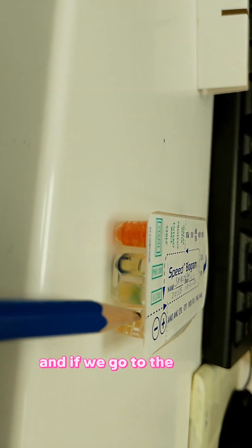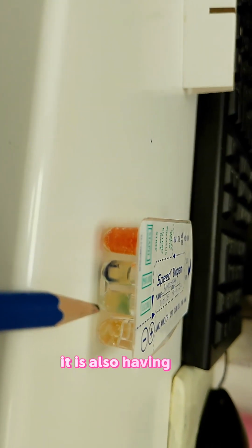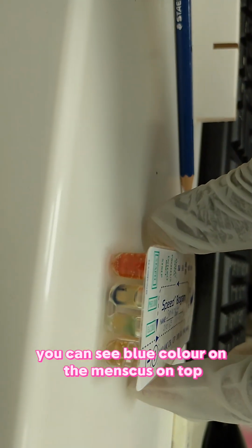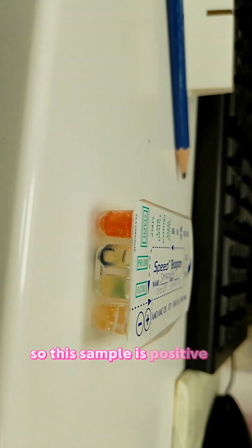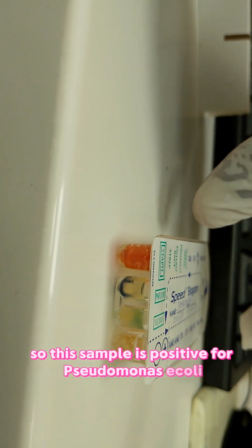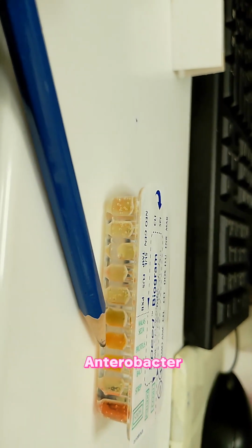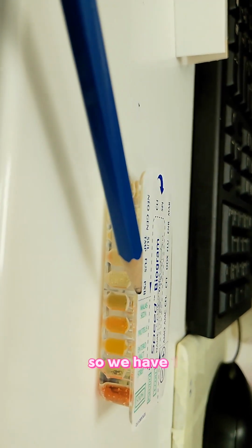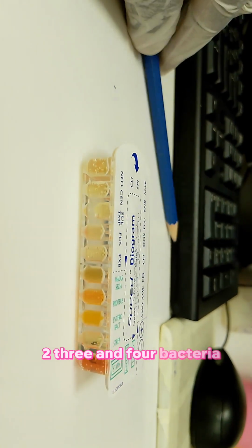And if we go to the E. coli, the E. coli is the same. It is also blue. You can see the blue color on the meniscus, on top. So this sample is positive for Pseudomonas, E. coli, Enterobacter, and Malassezia. So we have 1, 2, 3, and 4 bacteria present.